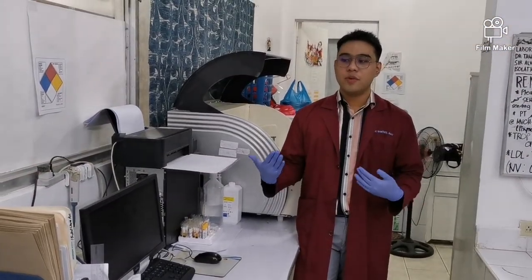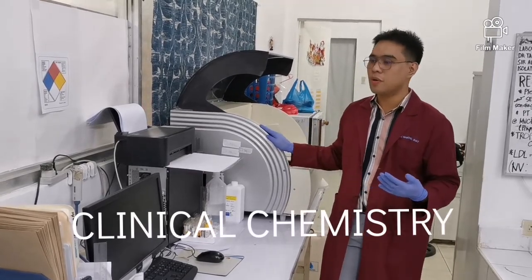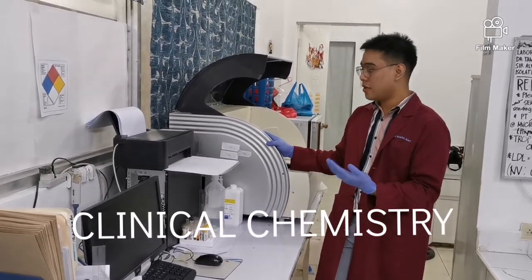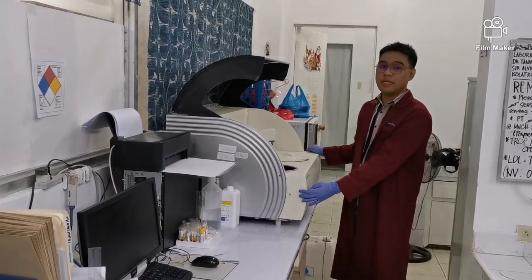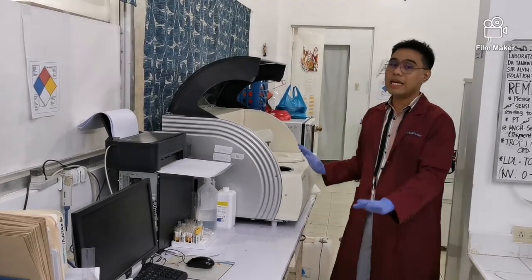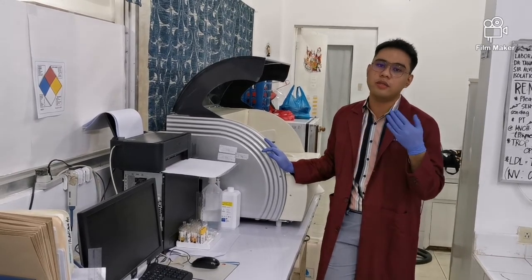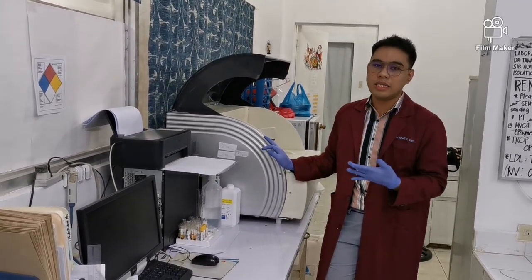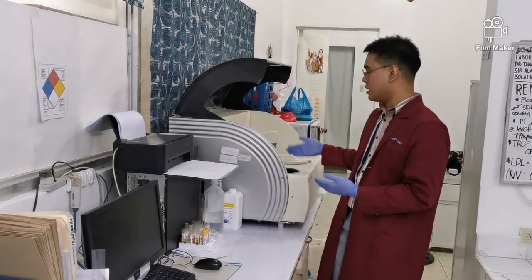So the next section that we are going to take a look at is our clinical chemistry section. Gabriela has a secondary lab, so here we are using a fully automated machine. This is the Response 920. It can do all the tests, from your glucose, BUN, urea, creatinine, lipid profile, to clinical enzymology, everything is here.